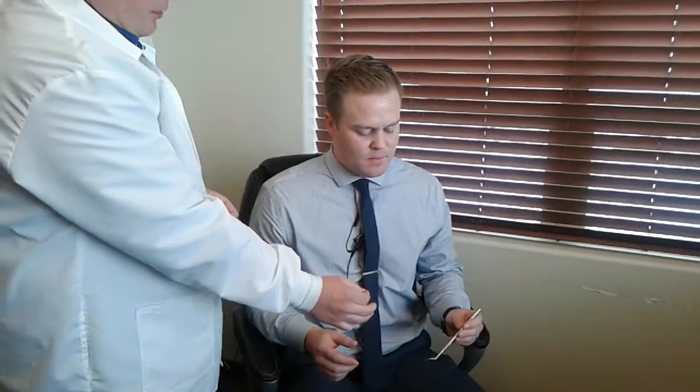First, assume a very good posture with a straight back, head straight as well, arms tucked into your sides at about a 90 degree angle, head slightly tilted down, looking as if you would be looking at a mouth mirror within a patient's mouth.